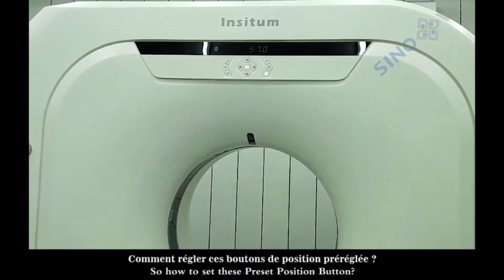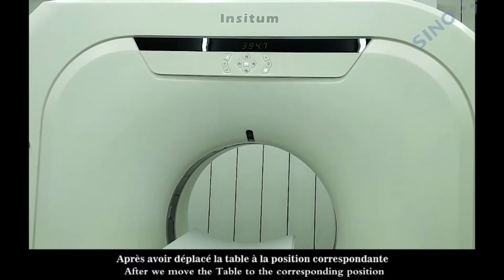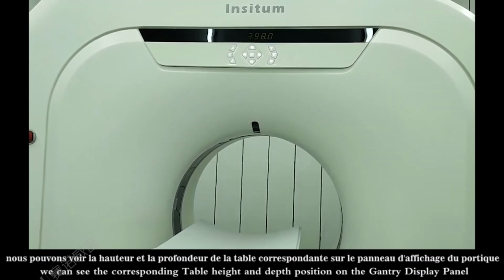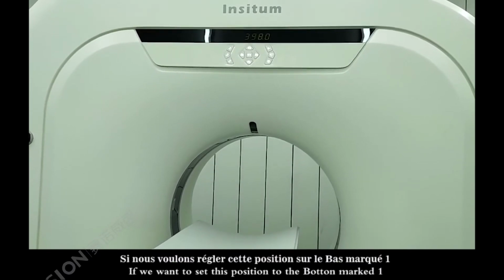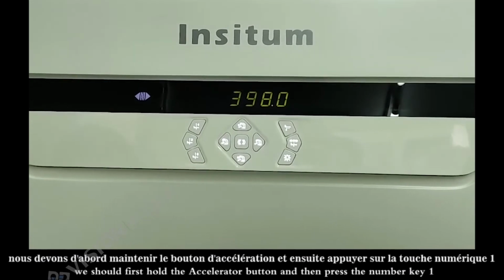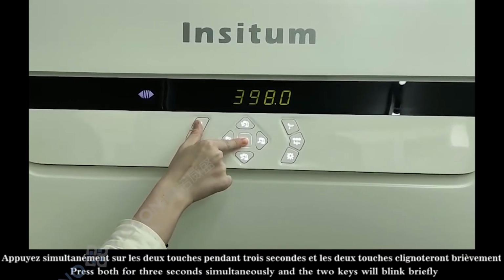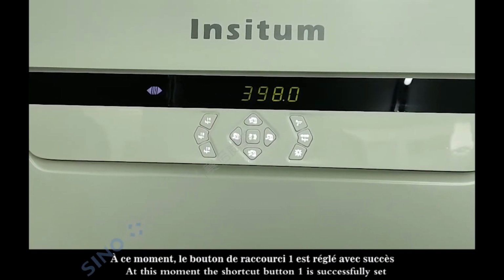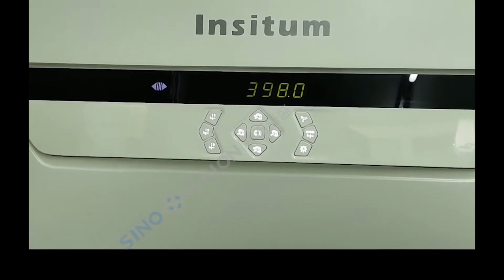So how to set these preset position buttons? After we move the table to the corresponding position, we can see the corresponding table height and depth position on the gantry display panel. If we want to set this position to the button marked 1, we should first hold the accelerator button and then press the number key 1. Press both for 3 seconds simultaneously and the 2 keys will blink briefly. At this moment the shortcut button 1 is successfully set.